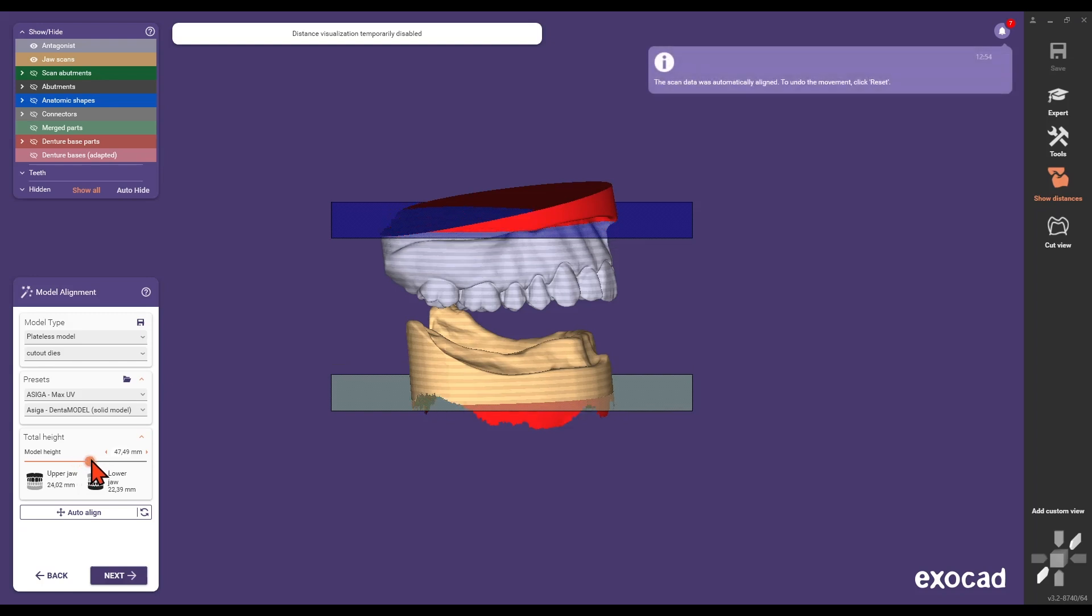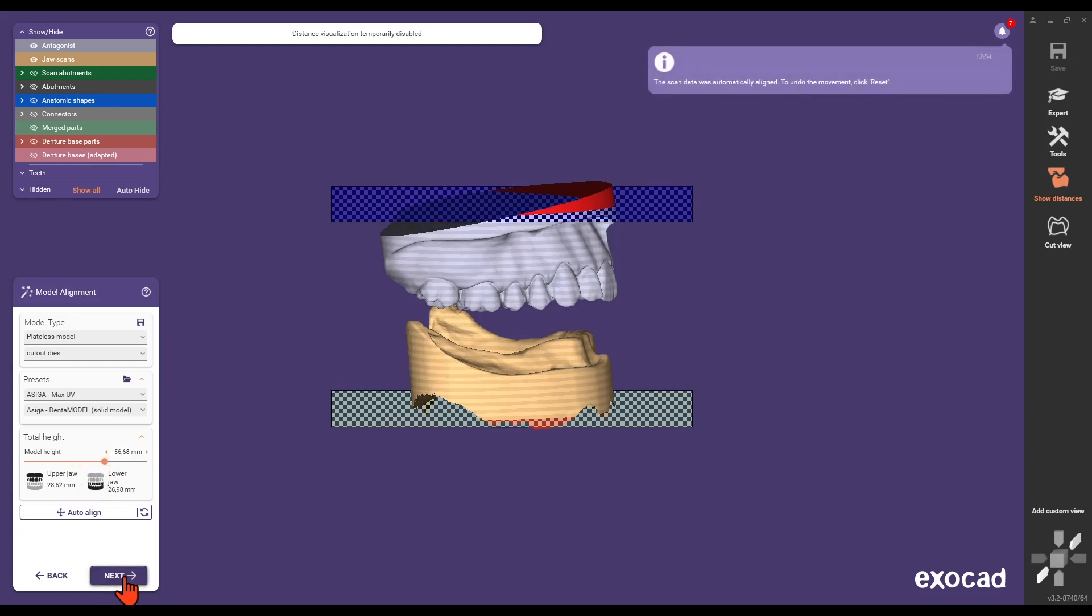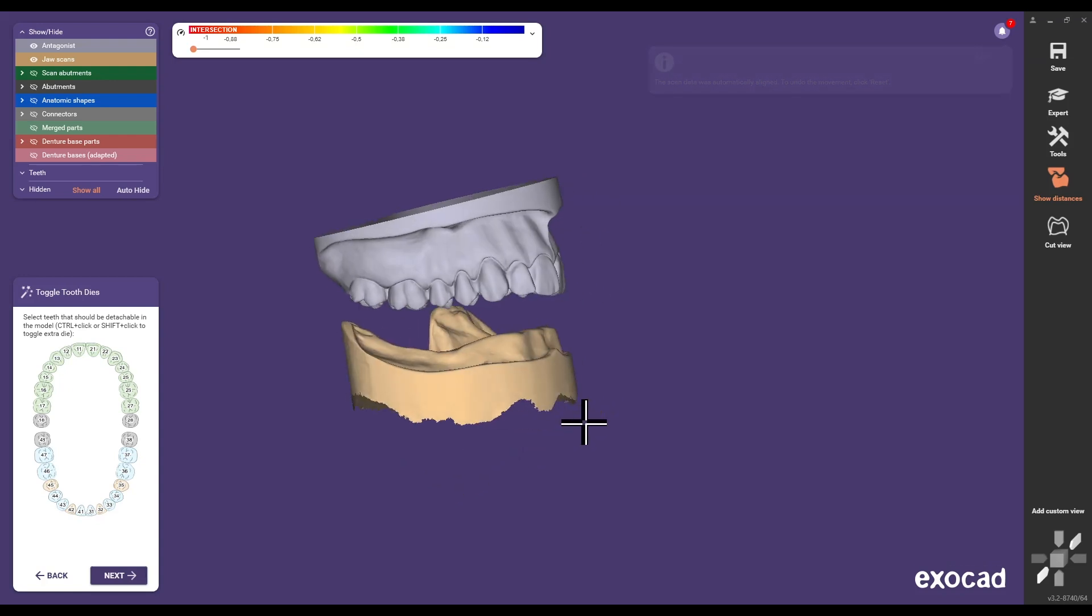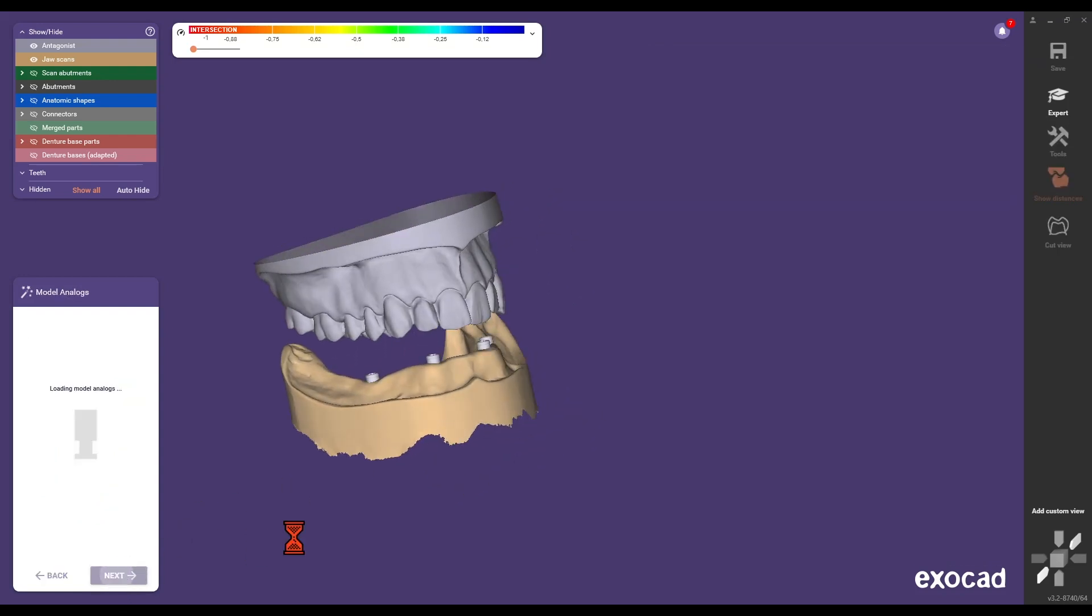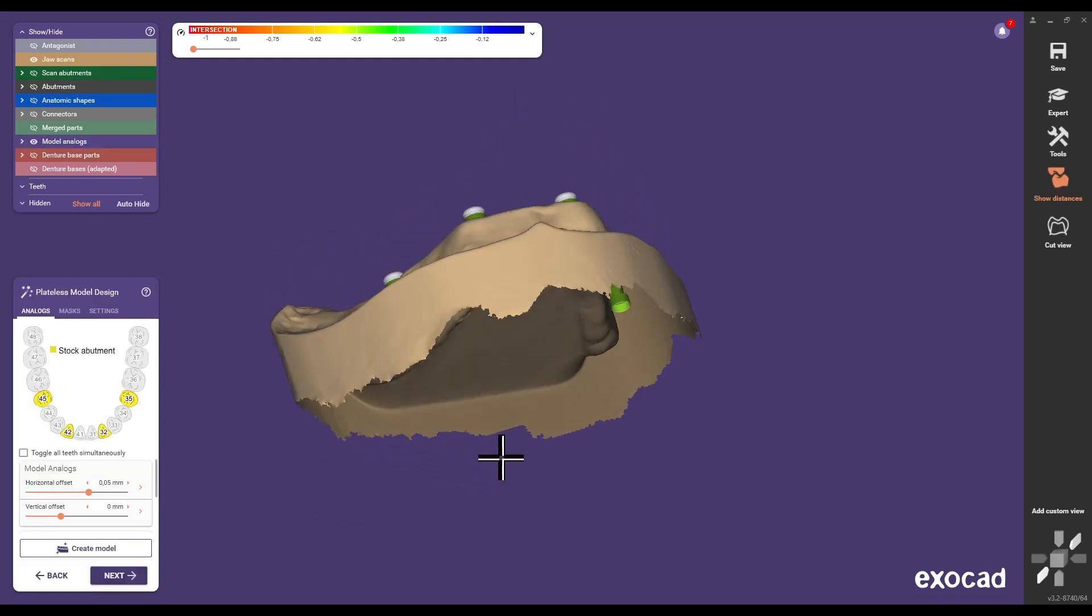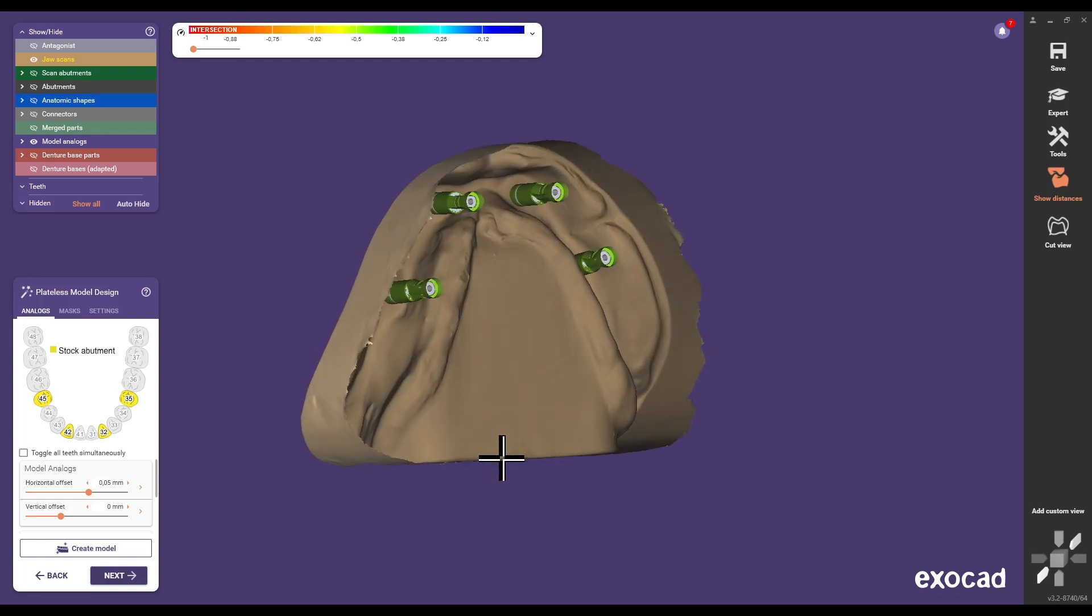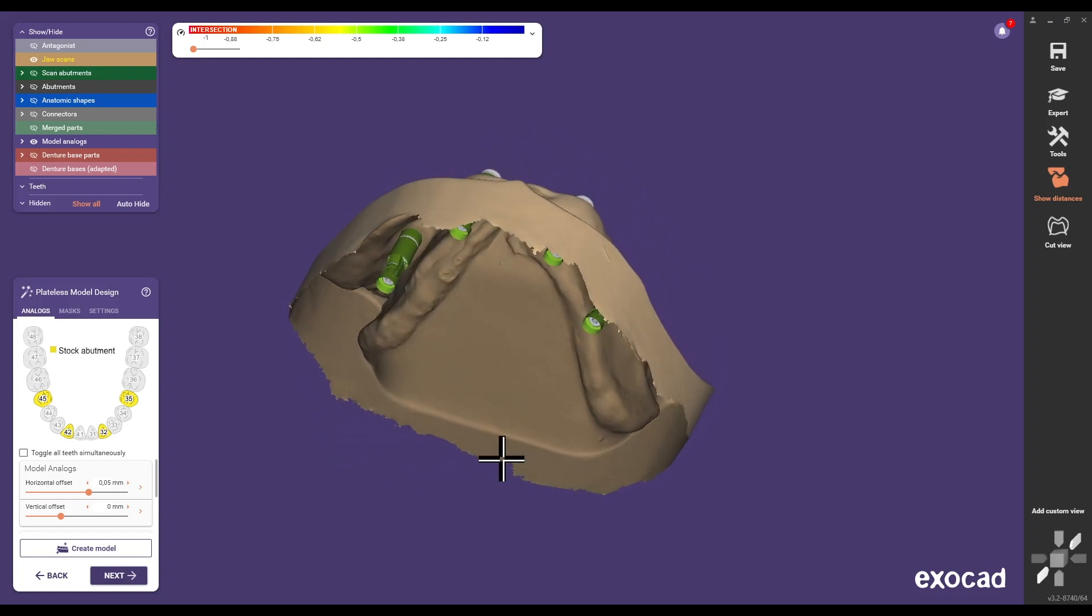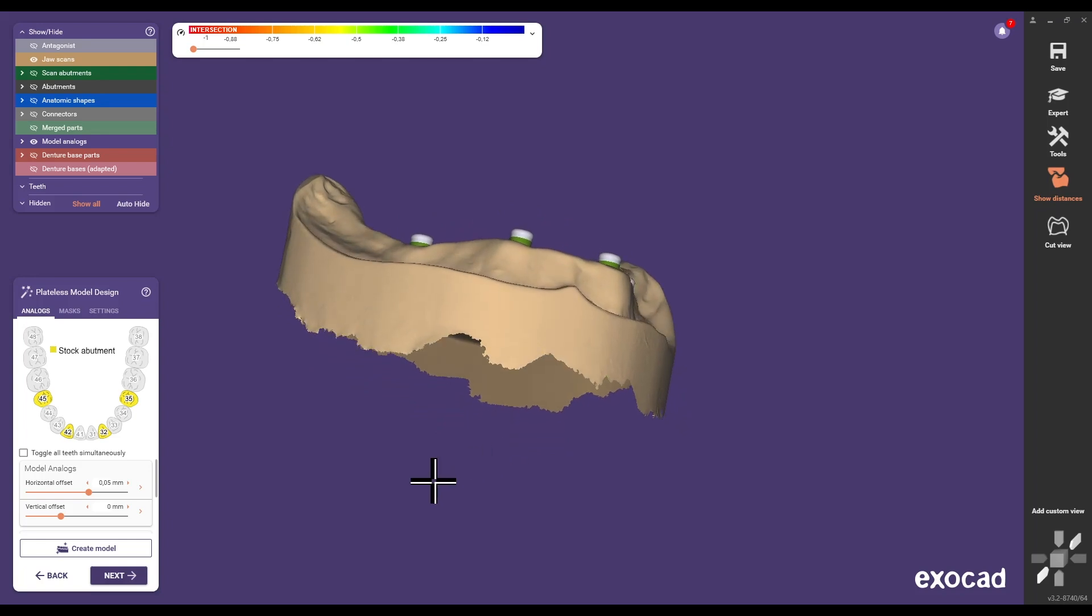Ensure you adjust the model height to account for sufficient material for the NovaLock laboratory implants CAD CAM. Adjust the parameters of the gap between the model and the NovaLock laboratory implants CAD CAM as needed. The NovaLock laboratory implants CAD CAM will be automatically placed in the correct implant position. Follow all steps in the assistant mode to finalize your design.